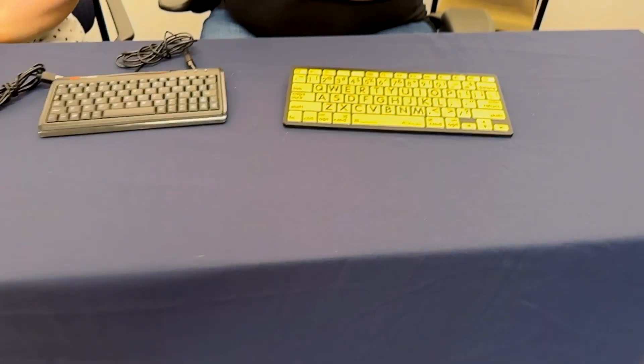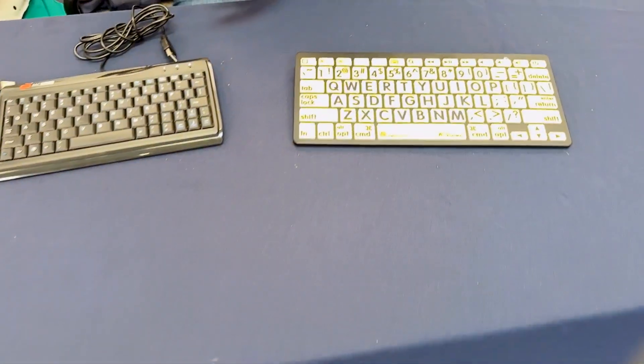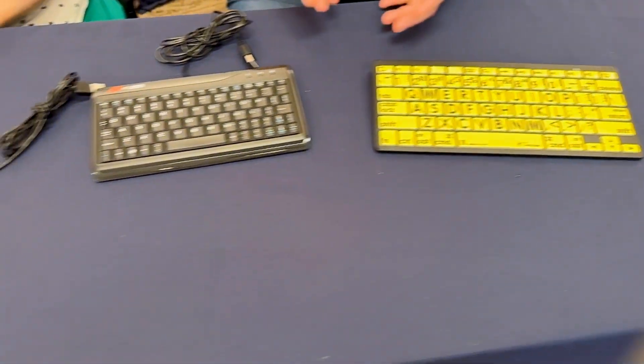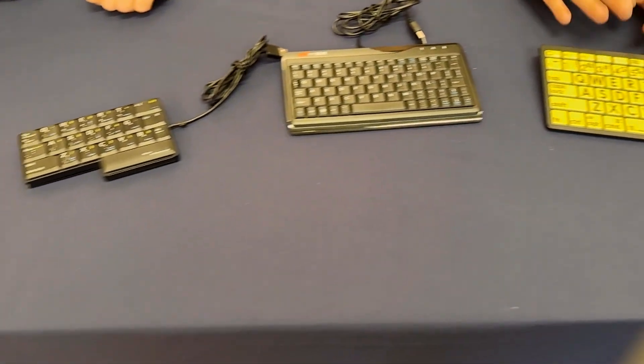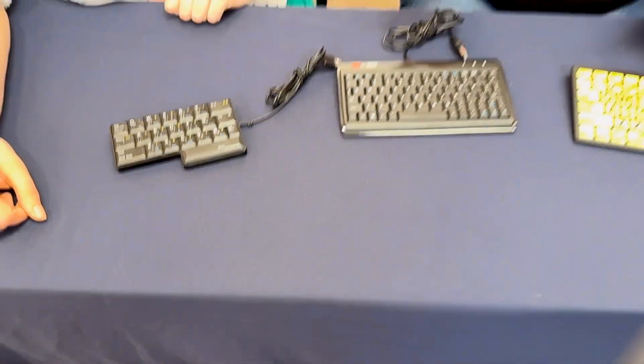Both of our programs get a lot of requests for keyboards that are for the use of one hand, so these are some different options.